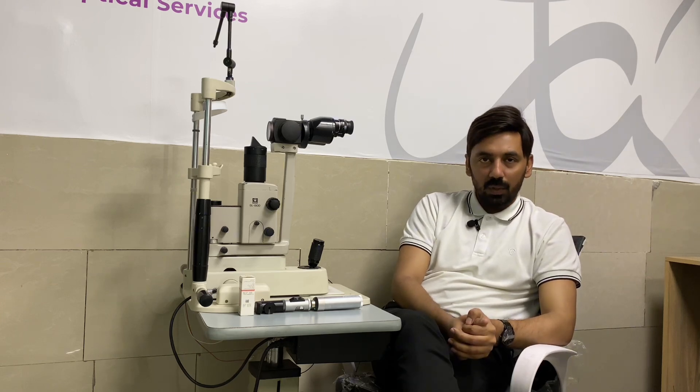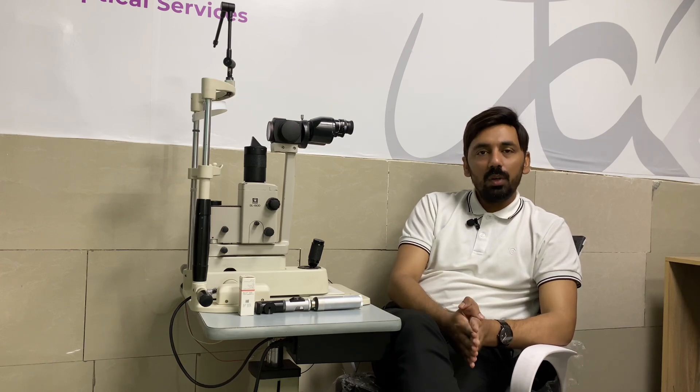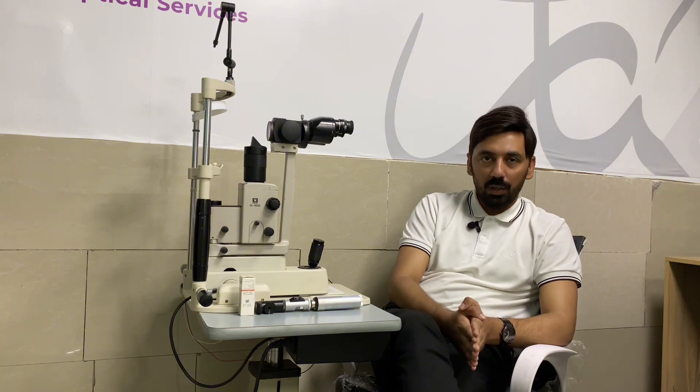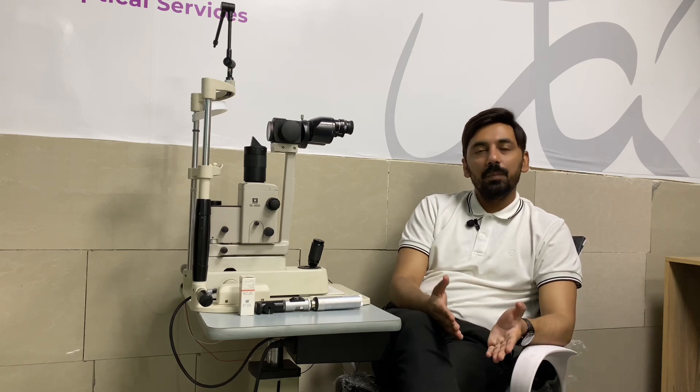The neutral point is very important when performing retinoscopy. If your neutral point is not accurately refined, your gross and net retinoscopic values will be incorrect. You have to be very careful while finding the neutral point, and always remember that the neutral point varies from patient to patient.